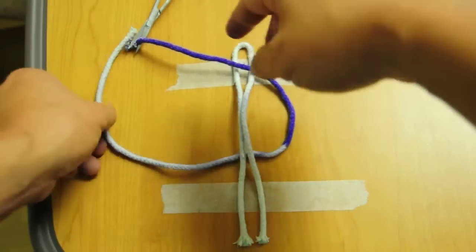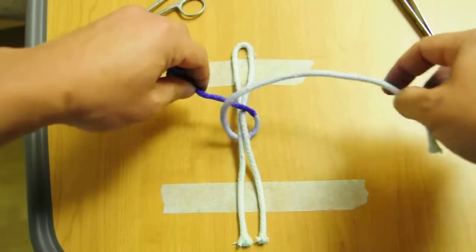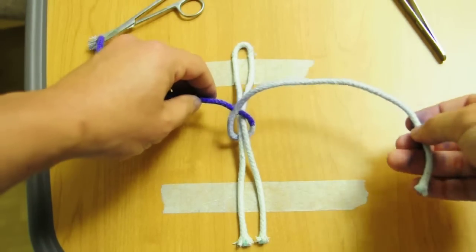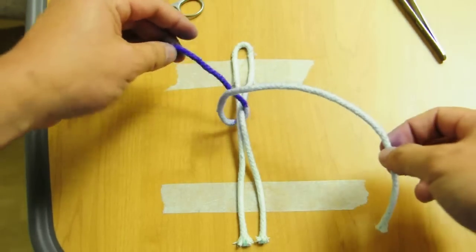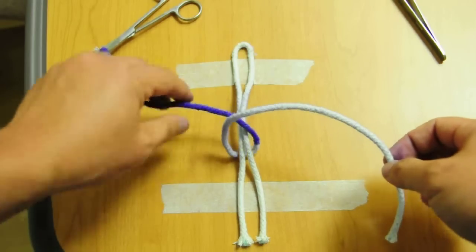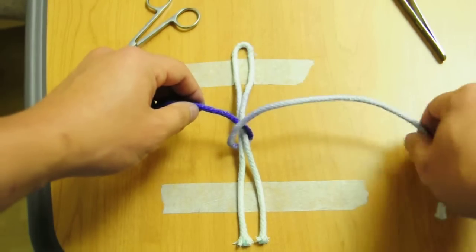It's definitely not letting go of that end, so you grab your sutures, you grab your end. Now you realize the free end is in your right hand and the frozen end is on the left hand. So now you're forced to tie left-handed two-handed ties.